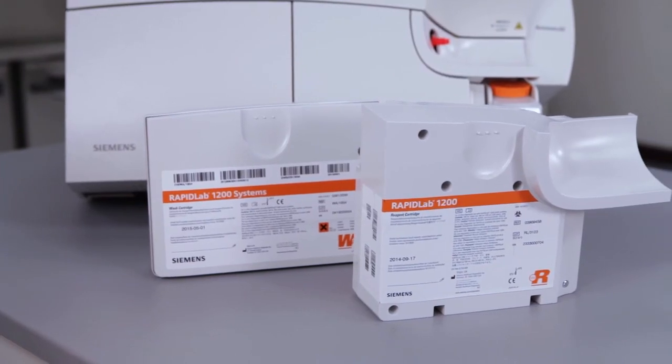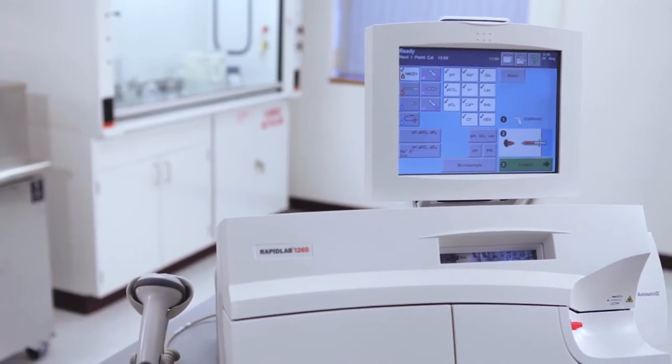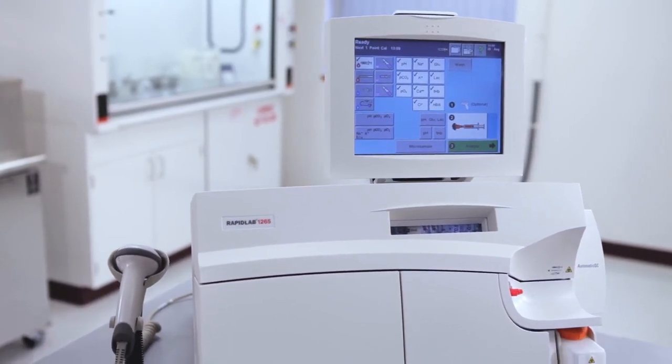Accuracy, simplicity, speed, reliability, connectivity, and support. Siemens Healthineers offers it all with the RapidLab 1200 system.